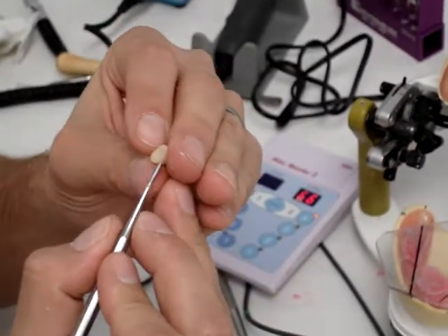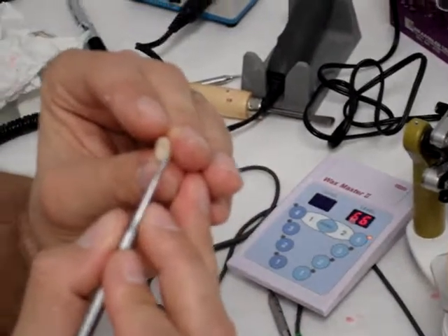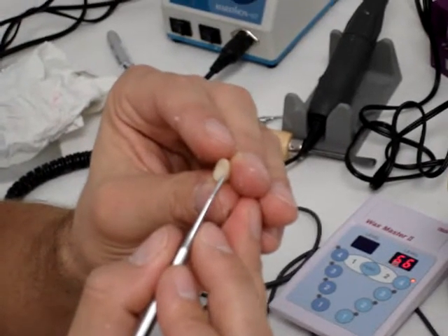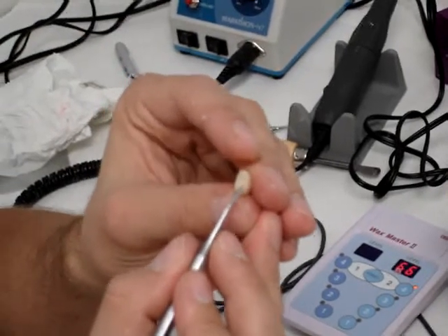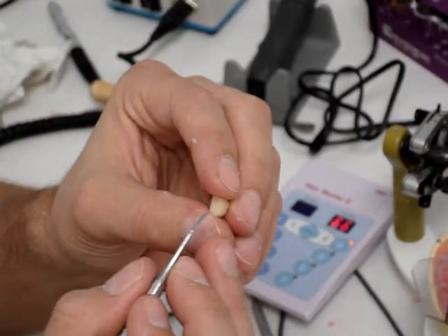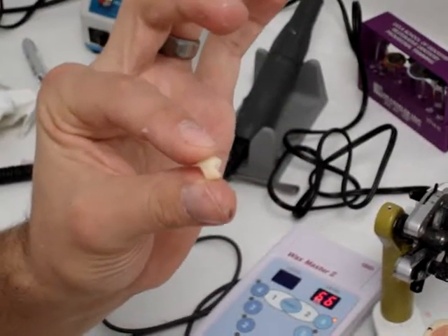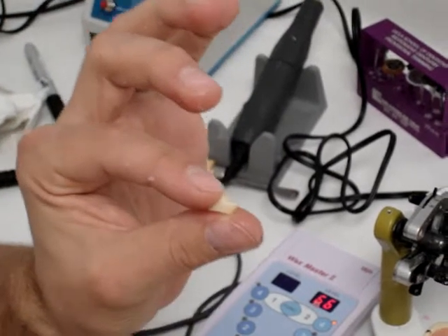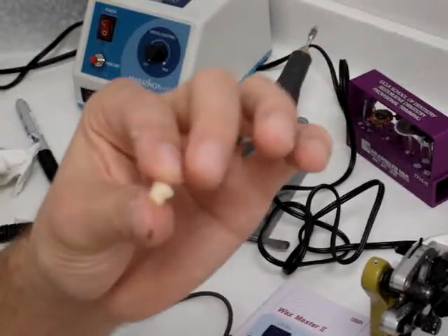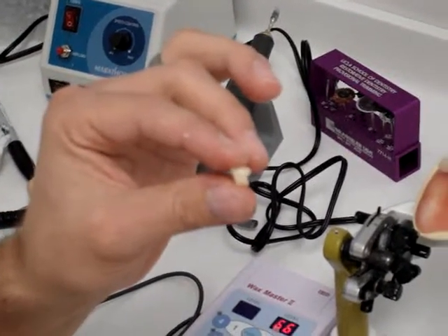One of the things on the bottom is on the mesial — it's really hard to see, but on the mesial of each tooth is a slight little raised bump. One bump for the first premolar, two bumps for the second premolar, and they're very hard to see. If you need to grind down on these, you will grind those off. So you can do something like Nate did — on the mesial of his first premolar, he put one dot with a quarter round burr, just a tiny little hole, so you can always tell. Because it's really easy to drop these teeth, mix them up, and that can cause problems later when you're trying to equilibrate and get centrics and everything.